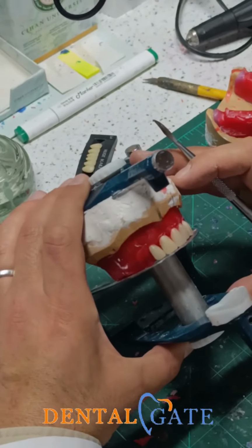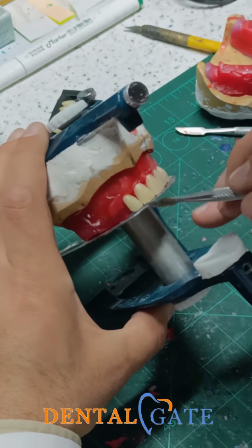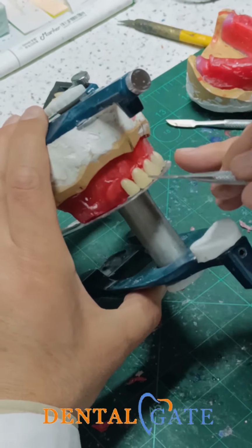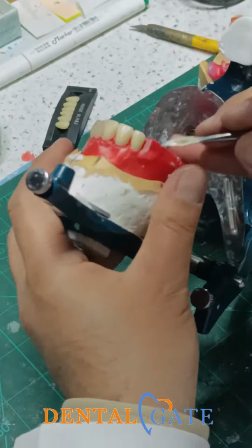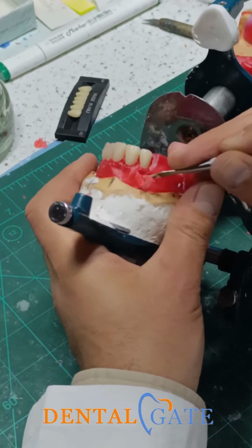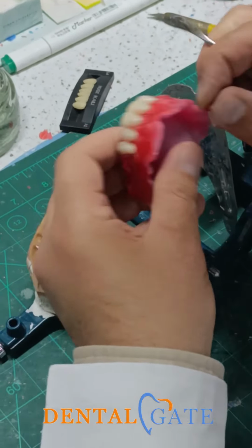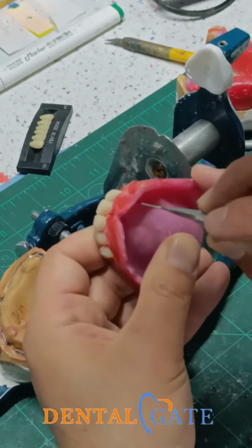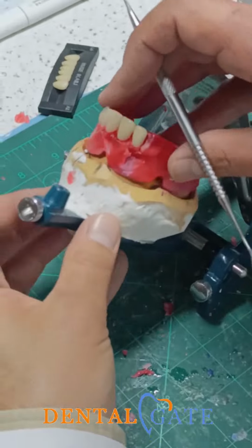So now this seems good because I have a contact area. If you want to make an inclination, don't, that is my recommendation. So this is the lateral, this is the curve, it will follow this curve. I will be sure there is nothing out of the ridge, because the crest of the ridge will be here. Okay, you can make a double check here from the bottom. You can put your lacron on the crest of the ridge and be sure the vertical axis follows the position of the crest of the ridge.